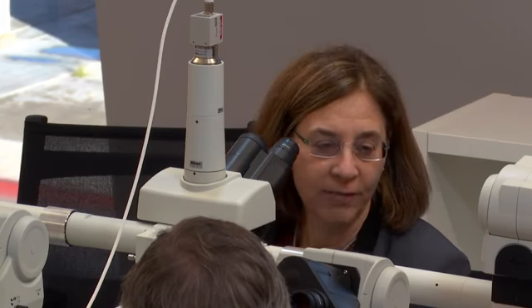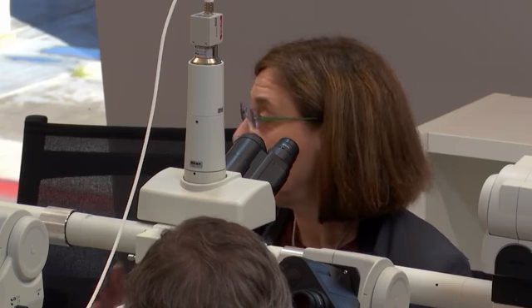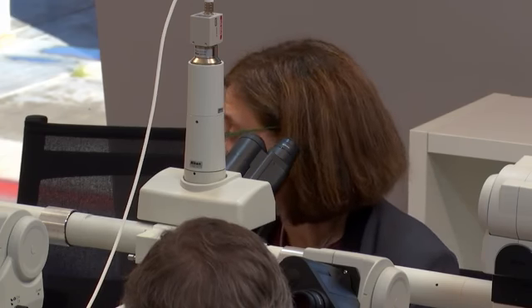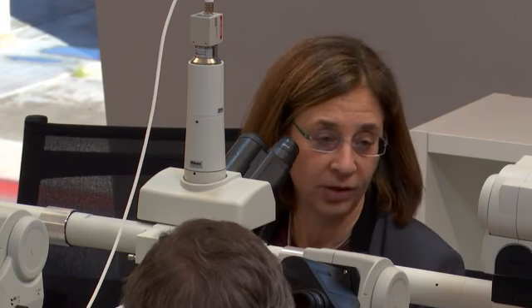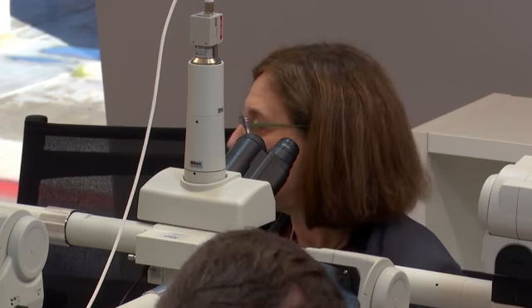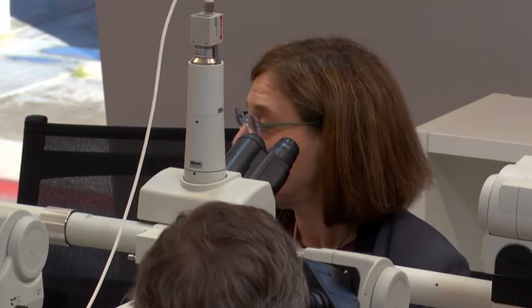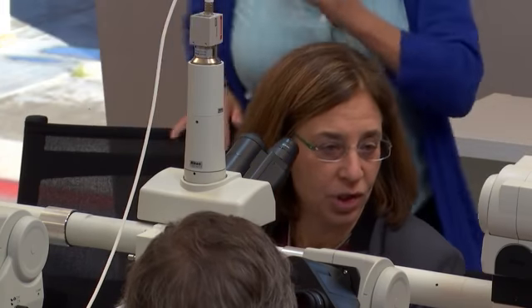We're going to start off with a series of 9 cases. The first few will look kind of similar, and they'll start a little simpler, and as we build, they'll get more difficult. I know you've all had a chance to look at the cases. So what I want to do is talk not just about looking at the slides, but I think medical liver is an area that many people aren't comfortable with, so I want to talk a little bit about the approach too.